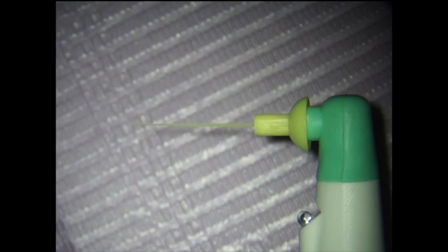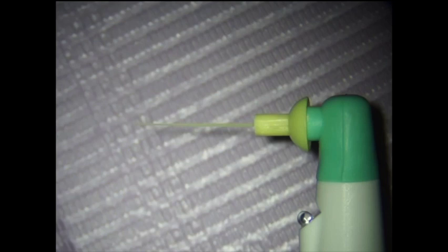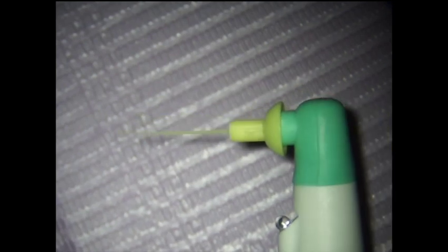When you see a sonic device in action you can literally see the tip moving forward, up and down. This type of sonic activation basically depends on hydrodynamics — pushing the irrigant more laterally into the accessory canals — rather than the micro bubble explosion or acoustic streaming that you see with ultrasonics. You can appreciate the increased amplitude of movement with sonics; you can literally see them moving up and down.